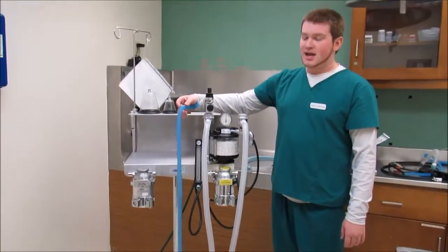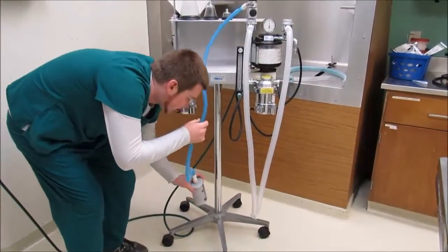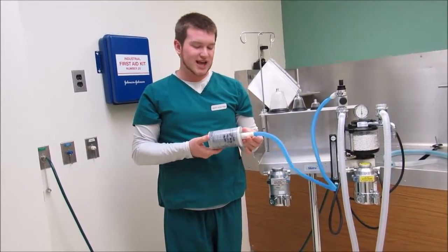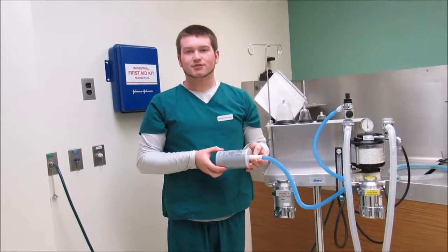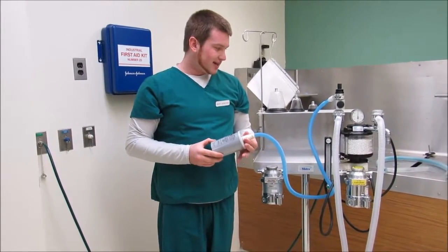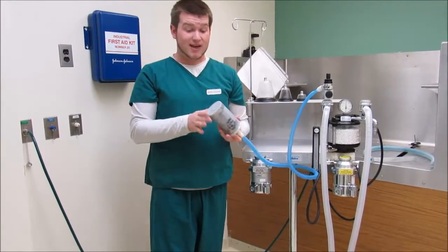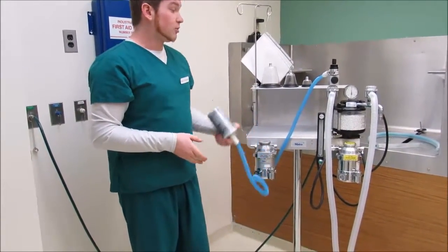When going through the passive scavenger system, if the F-air canister, I should call it, weighs more than 50 grams here, we're going to toss it because it no longer serves a purpose, because there's activated charcoal inside and it absorbs the leftover sevoflurane in this case. Okay, and that's pretty much how the anesthesia machine works. Another useful thing to know is never leave the F-air canister down. These vents on the bottom need to be open, so put it on its side, down at the bottom or up here, wherever you need it.